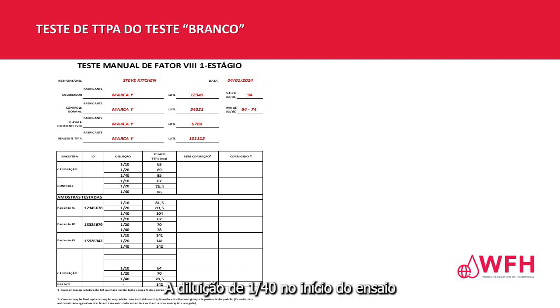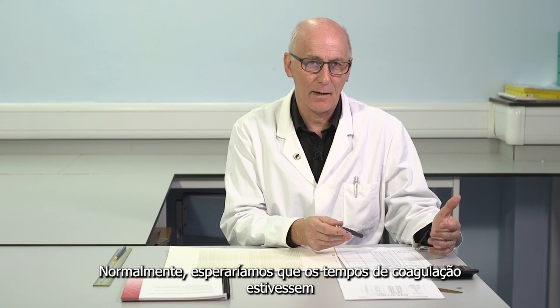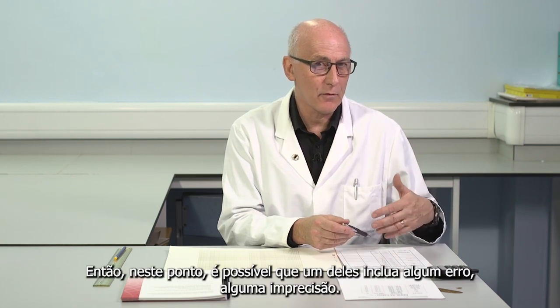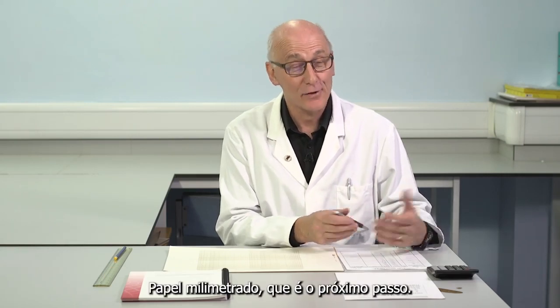The 1 in 40 dilution at the beginning of the assay, 85 seconds. For the calibration curve we ran at the end of the assay, the 1 in 40 dilution, 78.5. So that's quite different, 7 seconds. That's a bigger difference, almost 10%. Normally we would expect the clotting times to be within 5%. So that's quite a difference. So at this point, it's possible that one of those includes some error, some imprecision, and we'll be able to reach a judgment on that when we take those clotting times onto the graph paper, which is the next step.